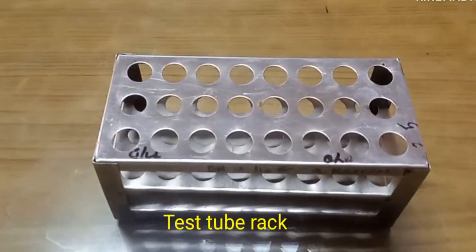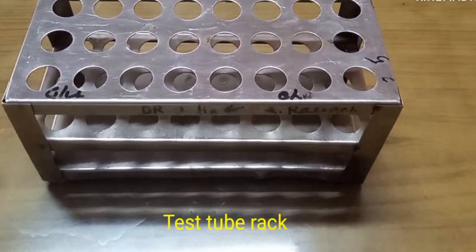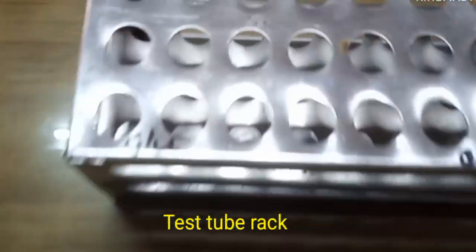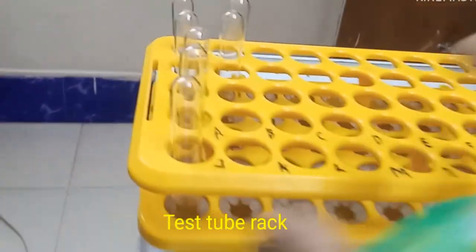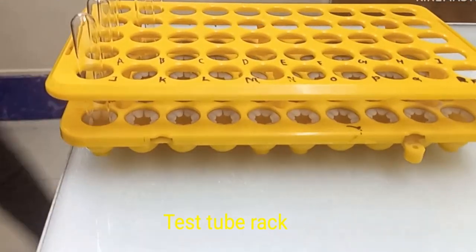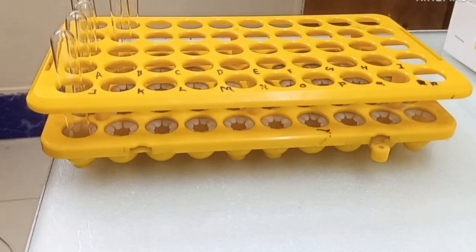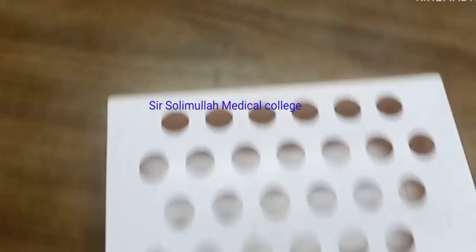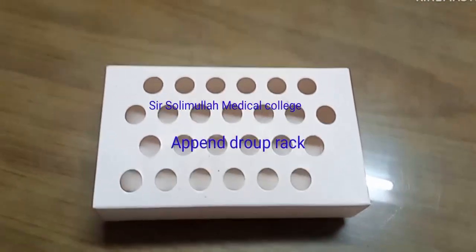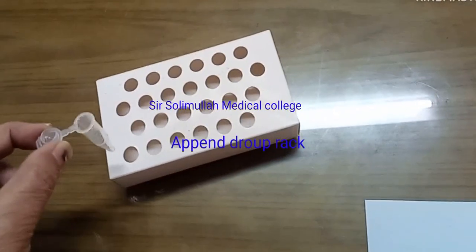My dear students, now I am showing you this instrument. Its name is test tube rack. There are varieties of test tube racks. Some are made of steel, some are made of plastic, and some are hard synthetic paper. It's used to hold test tubes in order in an upright position. Have you any question? Okay, thank you.